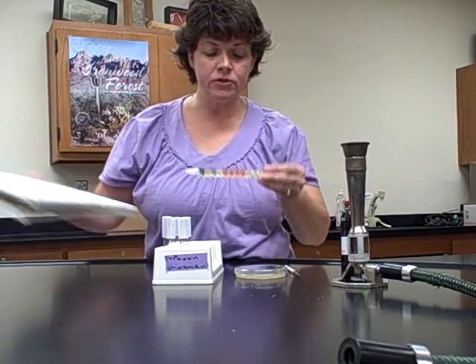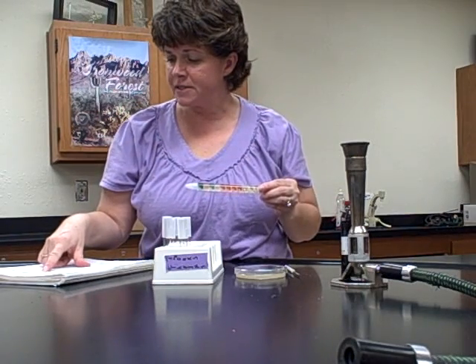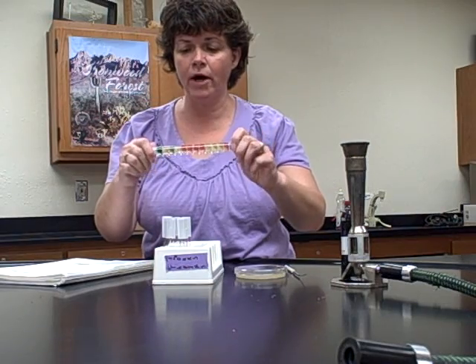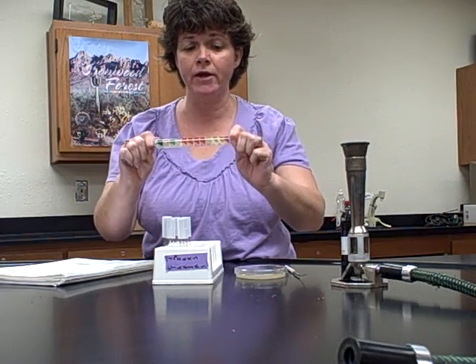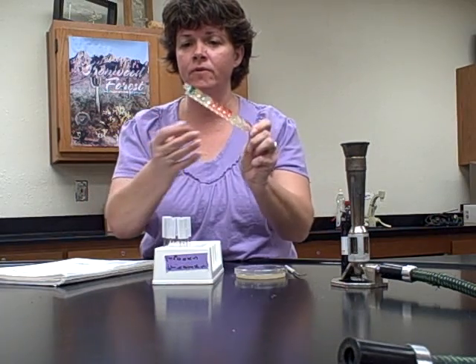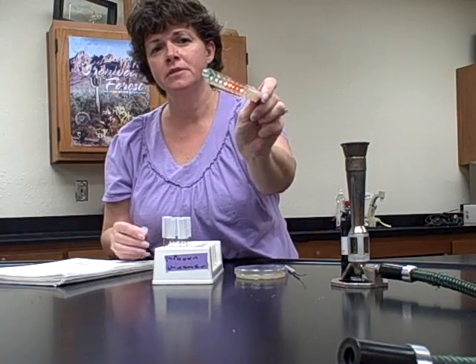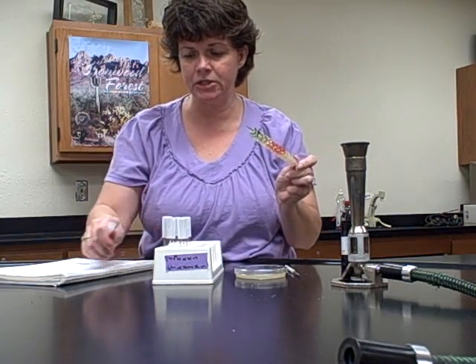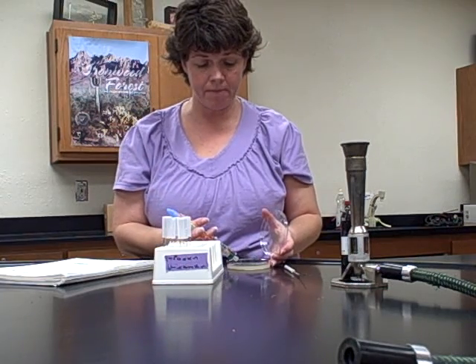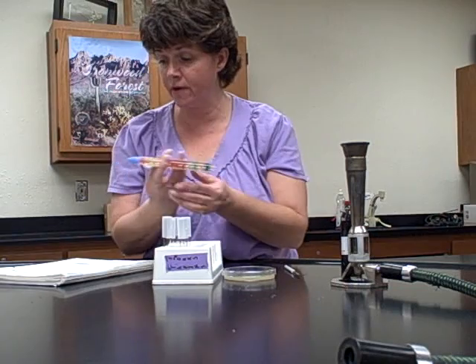Okay, for the Entro tube, it looks like this, and it says to pick a colony using the wire end, the pointed end of the wire. So what you have to do is open up both ends. There's the white end, and that's where the wire is, okay? And it's kind of a point. And so when you go to pick up the bacteria, you don't want to gouge the agar. So just scrape the colony off, okay, without gouging the agar, all right?